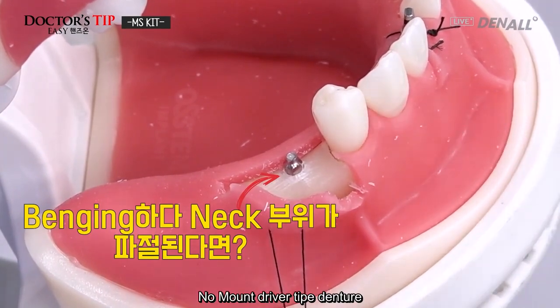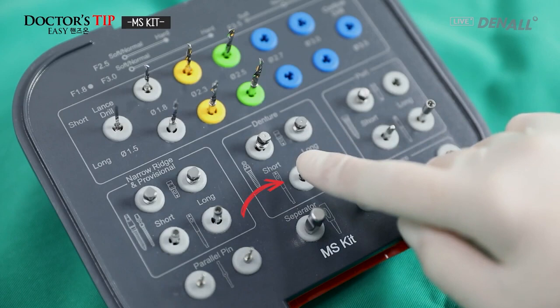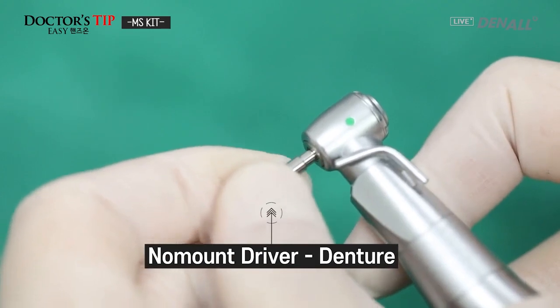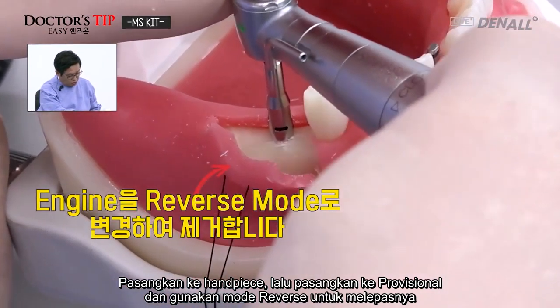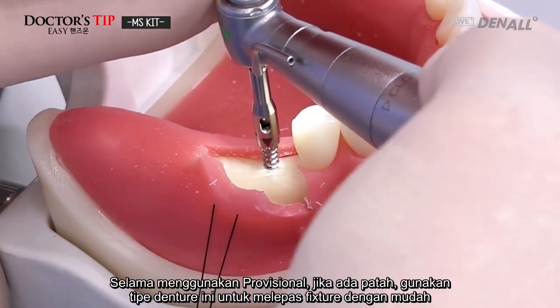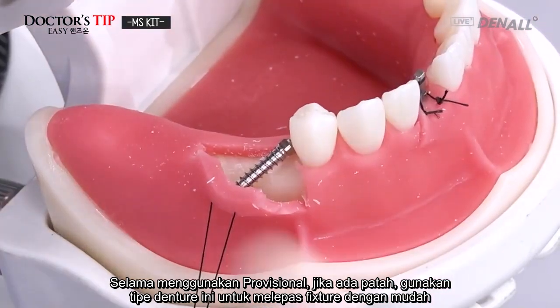then you have the denture type fixture driver, the no mount driver. For denture, you can use this. You connect, and you have a hexagonal rod on the provisional bottom side. So you push this in the reverse mode, then it can be easily removed. So while using a provisional, if there is a fracture, then using this denture type, you can easily remove the fixture.